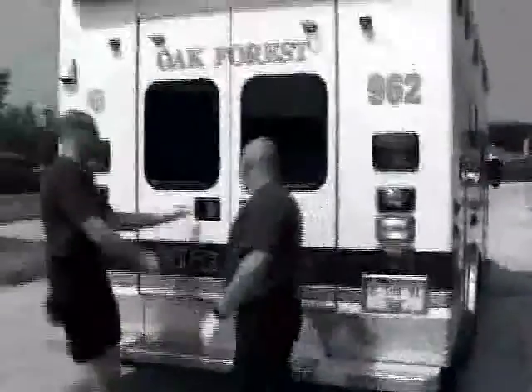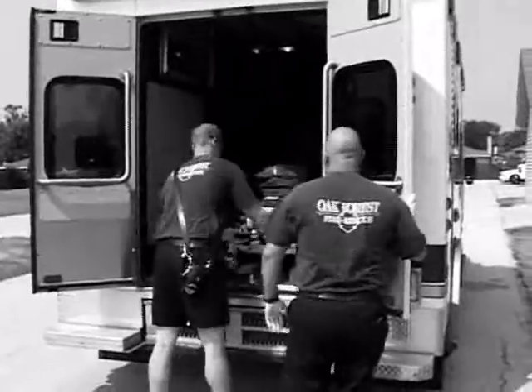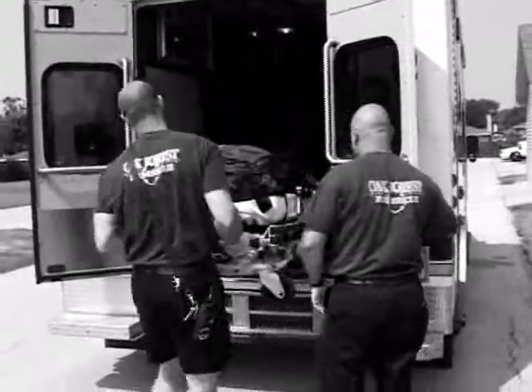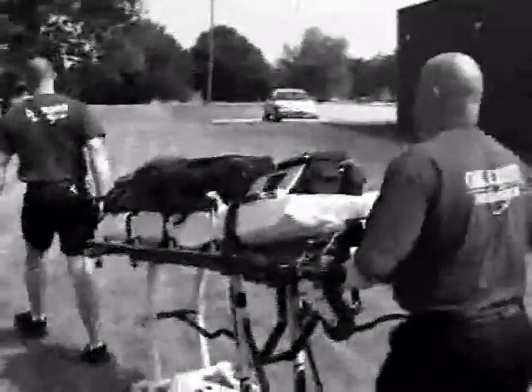A cot, also known as a wheeled ambulance stretcher, is the most common device for transporting patients. Cots are available in a number of different models with different features. Be sure to familiarize yourself with the cot you'll be using. Know where the controls are and how each works.